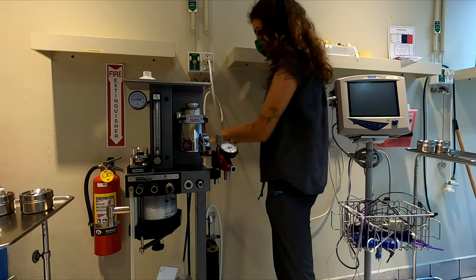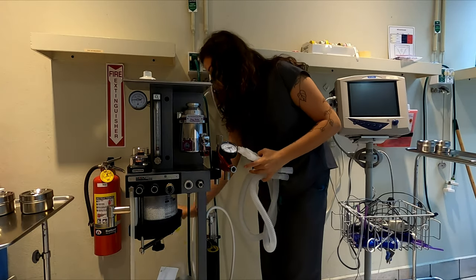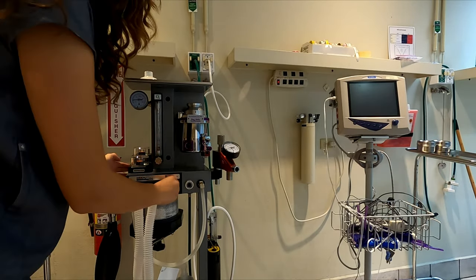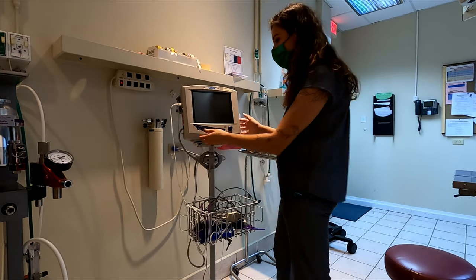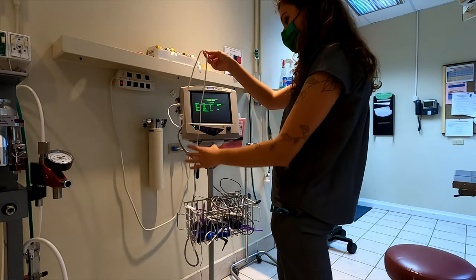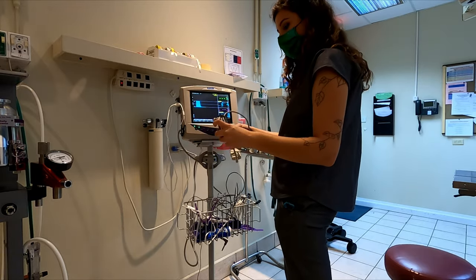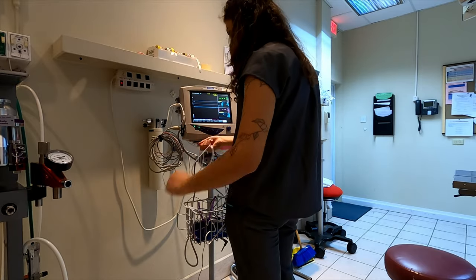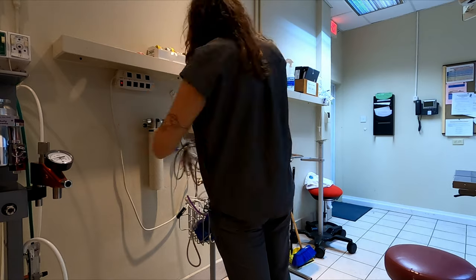In the anesthesia annex I set up the anesthetic machine completely from scratch — no tubing was on it, it wasn't attached to central oxygen, it wasn't attached to the scavenge system. So I made sure I went through, set up everything properly, made sure everything was connected so that the patient can get oxygen and anesthetic gas but none of that anesthetic gas can get into the room. Then I performed a leak test. I also turned on the monitoring machine and made sure I knew where all the leads attached. The monitoring equipment we're using includes a SpO2 monitor (pulse ox), a capnograph to measure the CO2 the patient is breathing out, an EKG, a blood pressure attached to that machine, a Doppler blood pressure read independently, and a temperature probe.